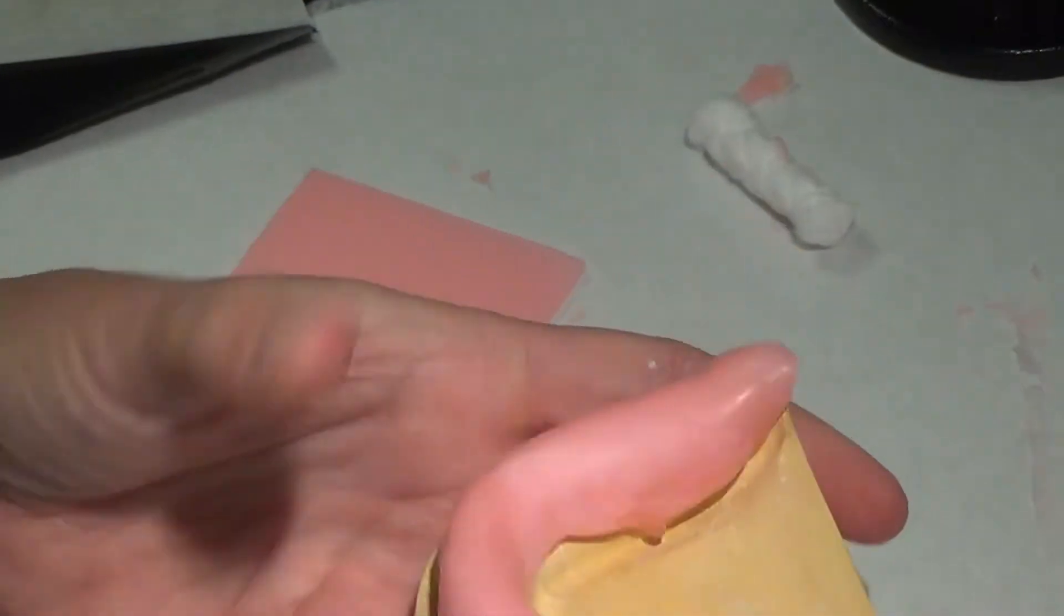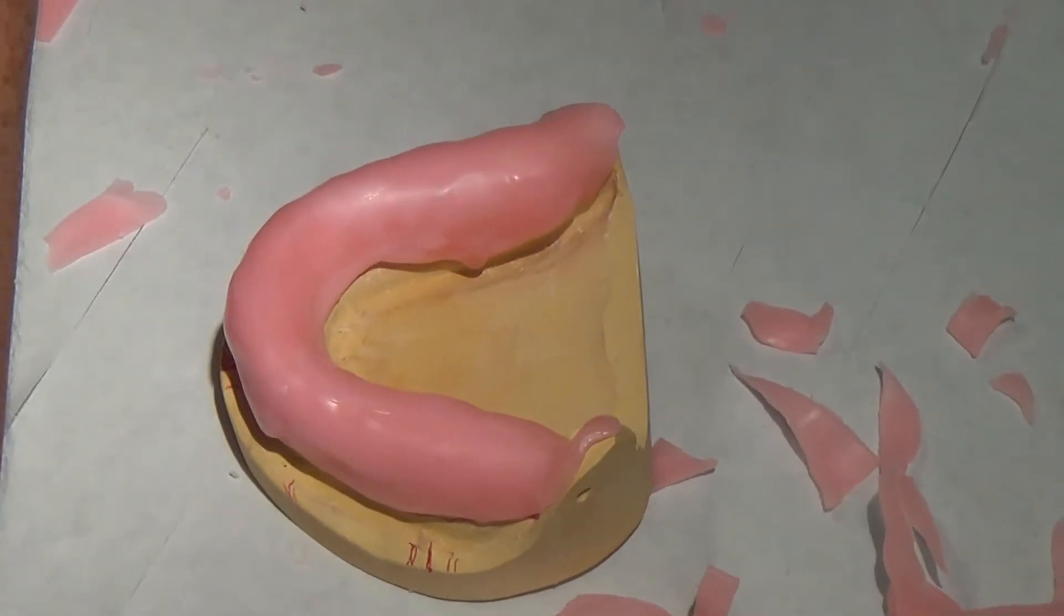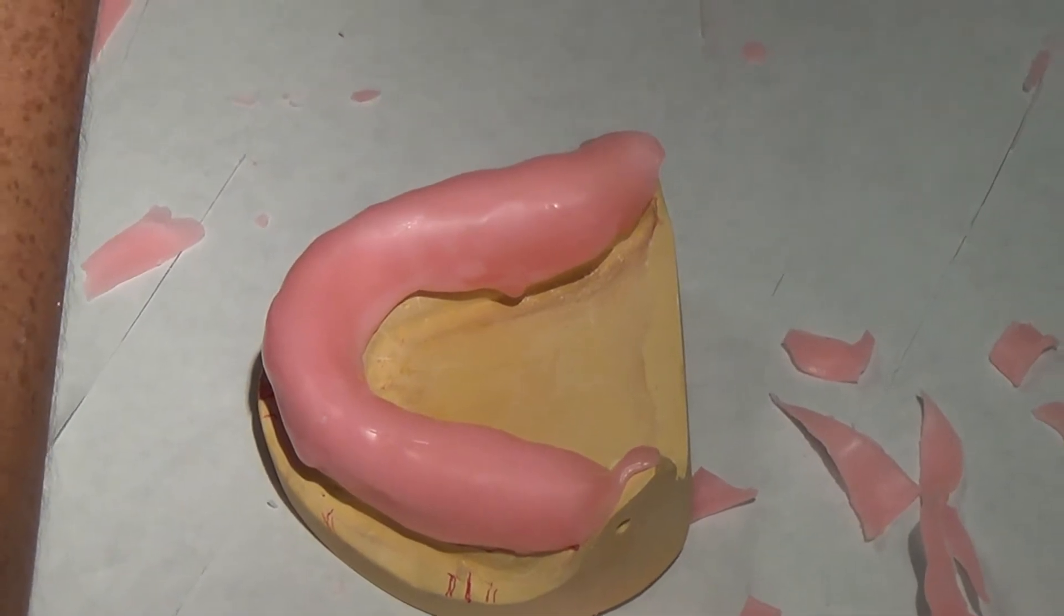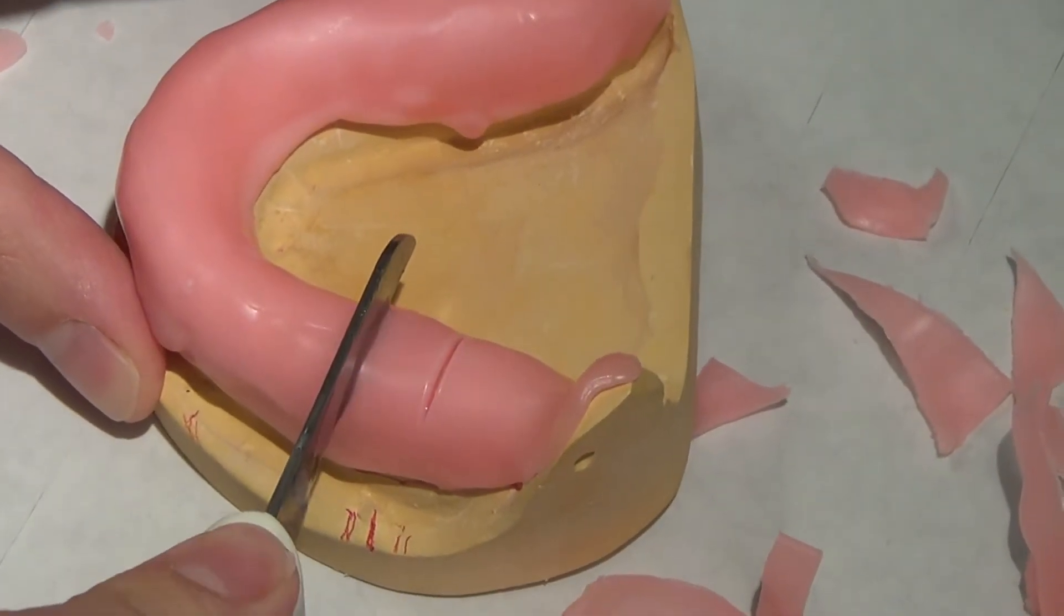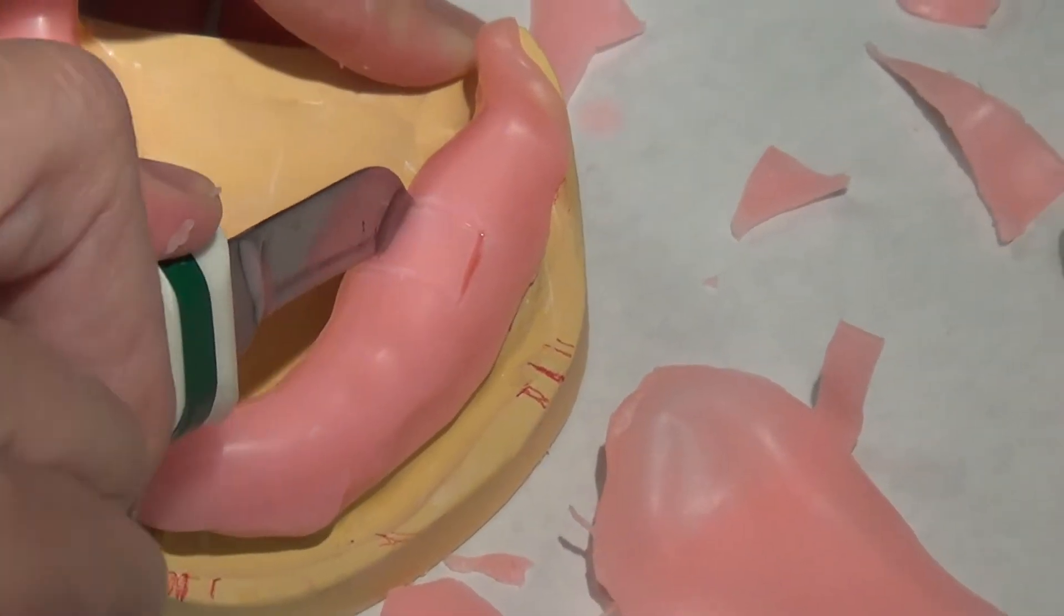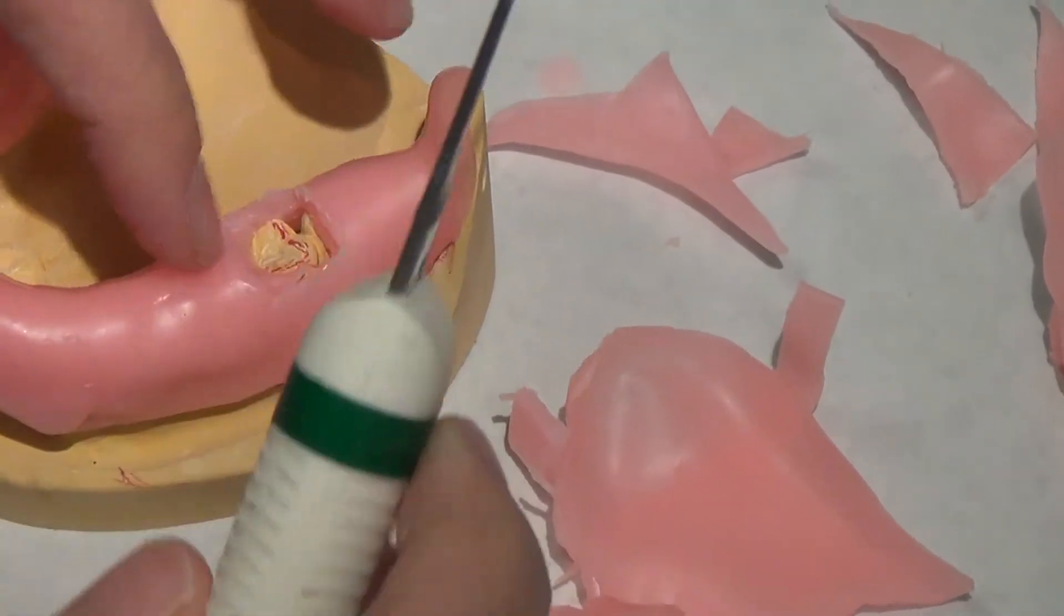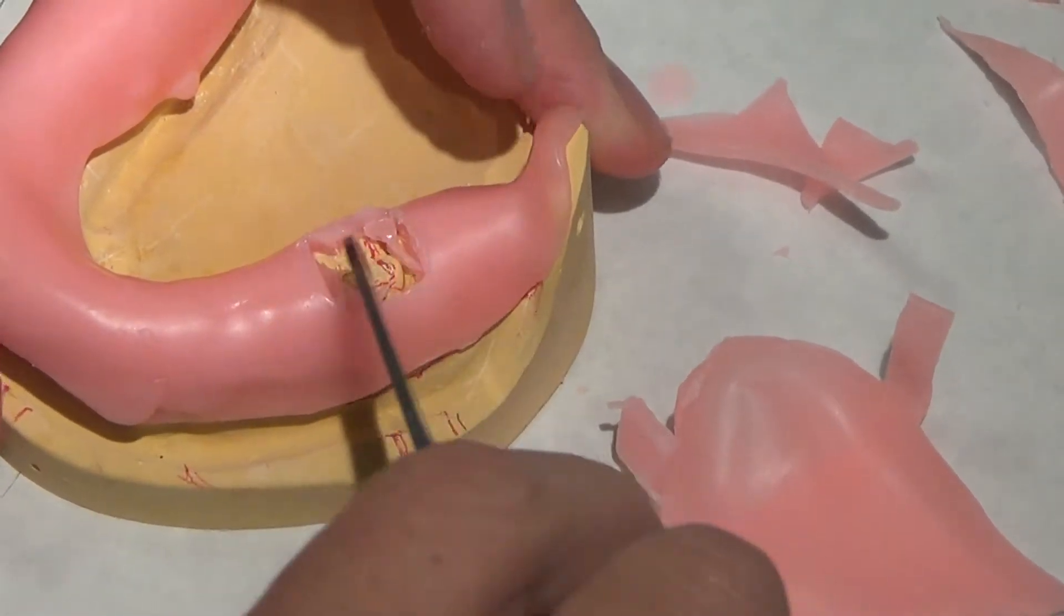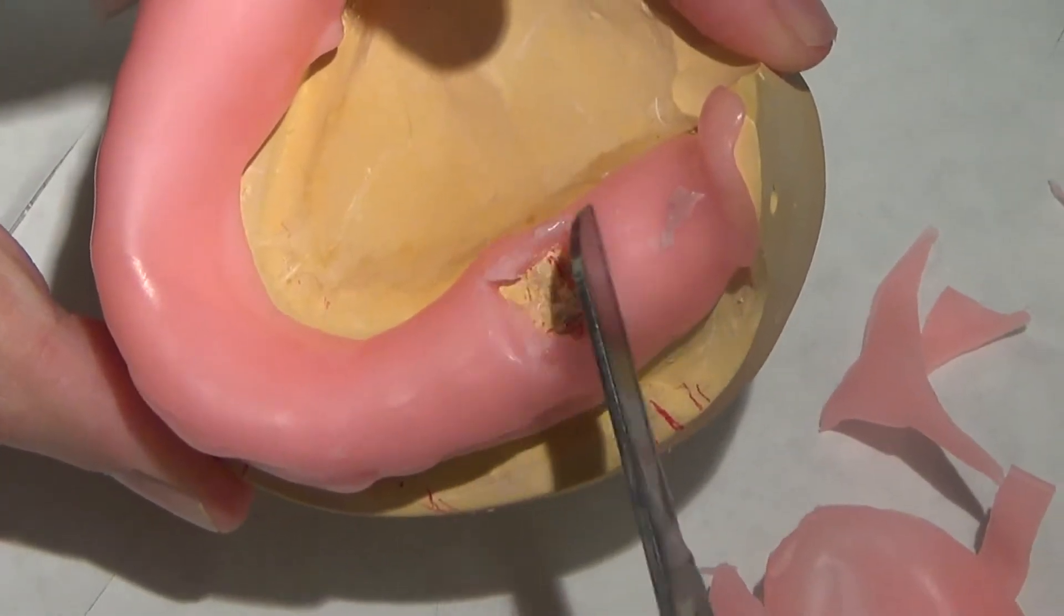Not burning myself. Alright, so now I have these references to cut my stops. Warm up my knife really well, kind of line it up with those lines there. And again, this doesn't have to be pretty. It doesn't have to be the whole molar or exactly over the bar, just has to have surface area to contact. So you can see I'm more on the distal half, distal two-thirds of that tooth. I'm happy with that.